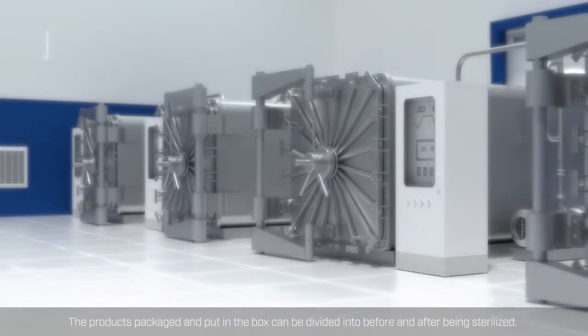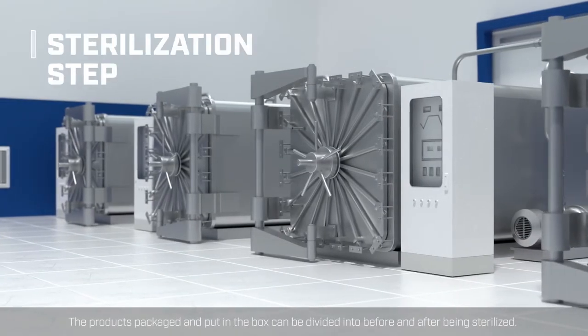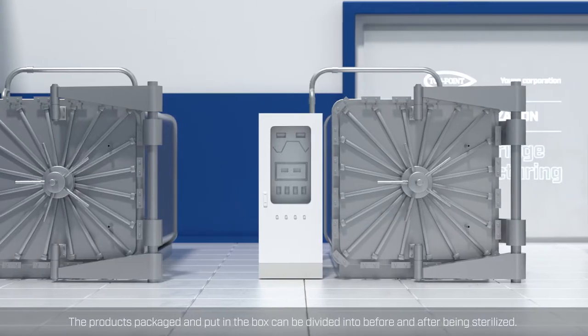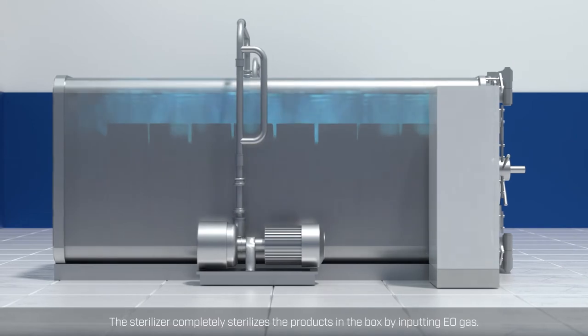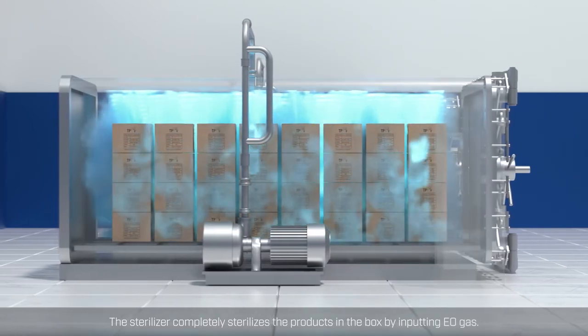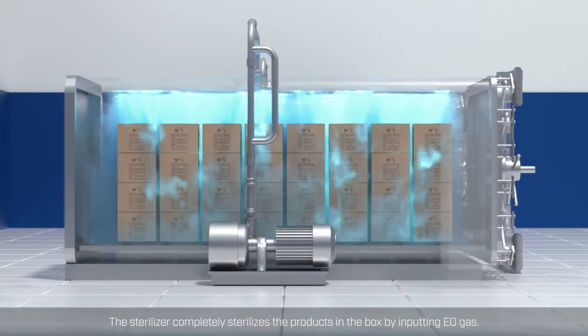The products packaged and put in the box can be divided into before and after being sterilized. The sterilizer completely sterilizes the products in the box by inputting EO gas.